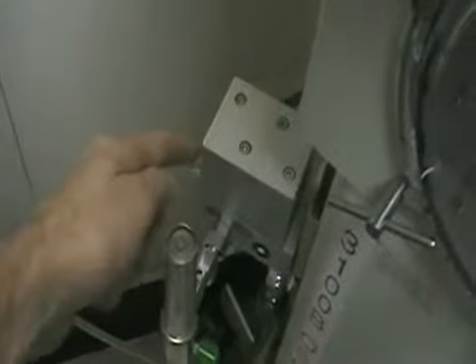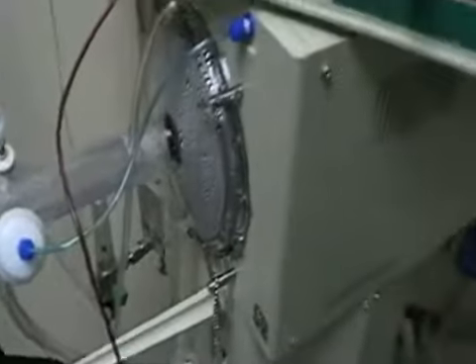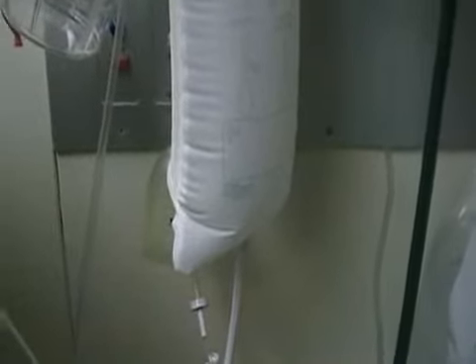We've got a blender system over here. Anything that comes out of this flow meter has been altered by the blender. The oscillator can be very dry into the lungs, so we have to supply some heat. We've got a heated wire circuit — you just plug in like that. We hook the water back up to a pressure bag — just a normal infusion bag with pressure — and that keeps the oscillator from pushing the water up out of the flow chamber and back into the bag. When that happens, you can crack your flow chamber.